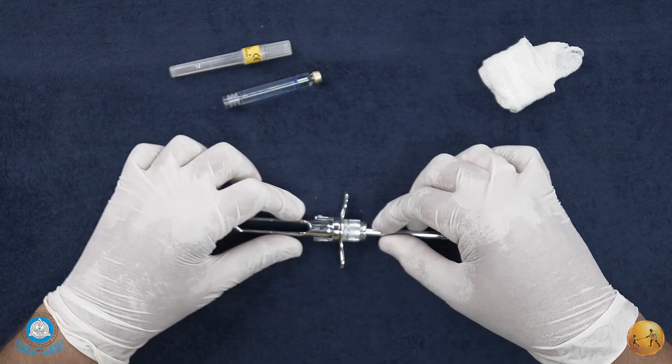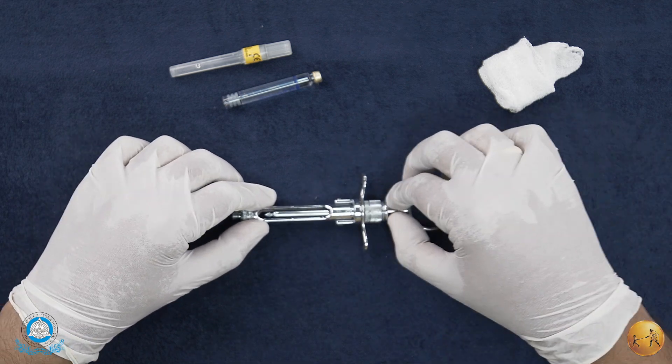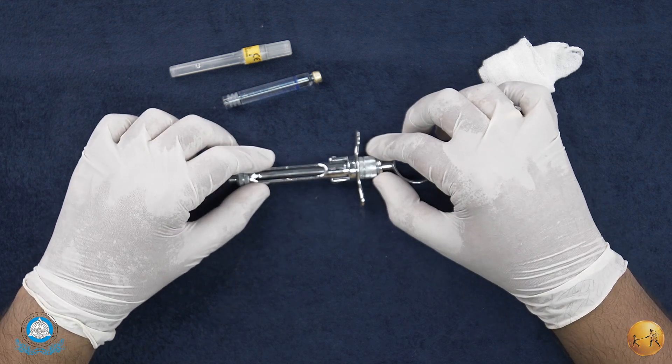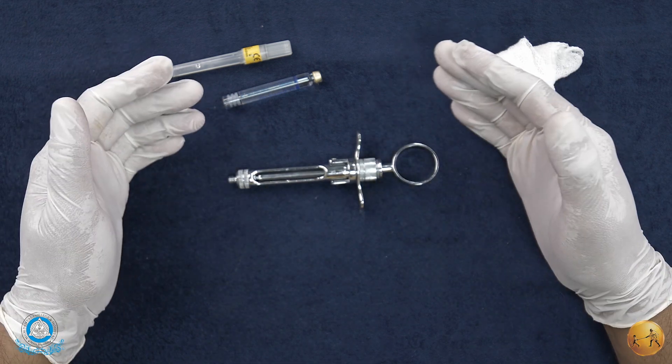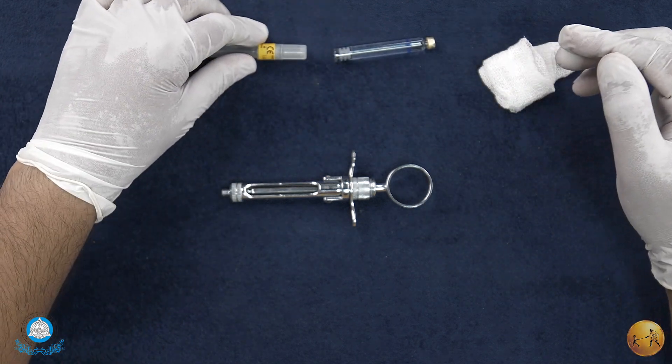After that, you will be opening up the syringe itself, getting the cartridge out, discarding the cartridge safely, and ensuring that there are no loose parts of the syringe that may be lost. Secure the syringe and ensure that it goes through the standard washing, disinfection, and sterilization protocols that are prescribed from time to time.